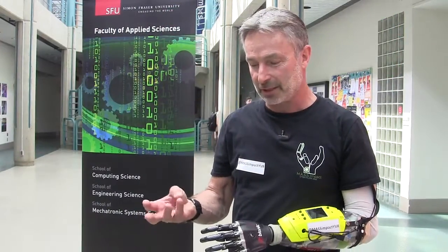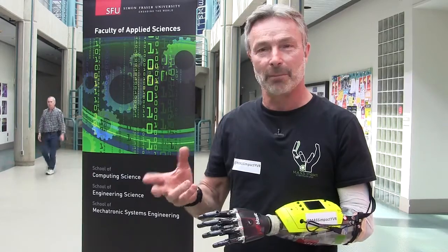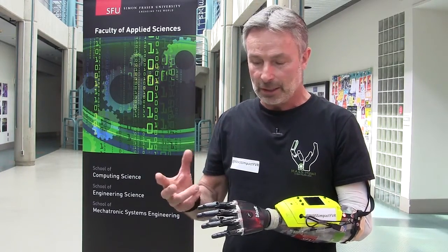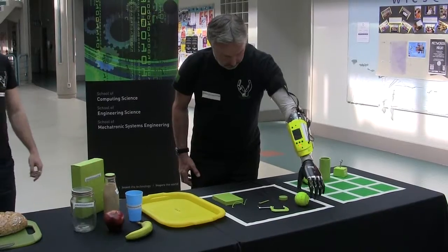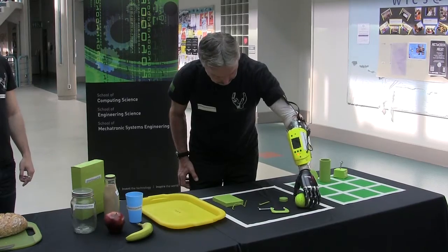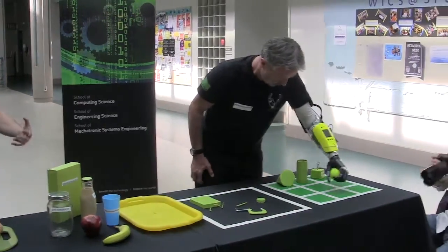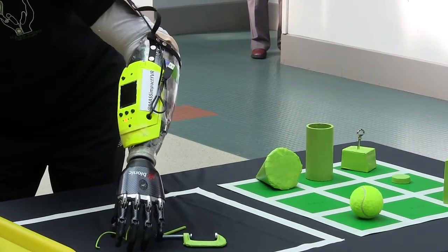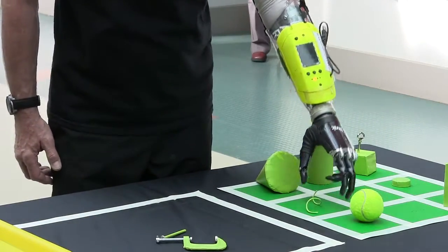It's changed my life in the fact that I'm actually working my fingers in my stump, which I've really never done before. The myoelectric, which some of our competitors at the Cybathlon will be using, runs on basically only three fingers. We have 11 different grip patterns with this technology, so the potential is to do a lot of different tasks and also be able to do them overhead — which with the myoelectric and my current arm, you can't do.